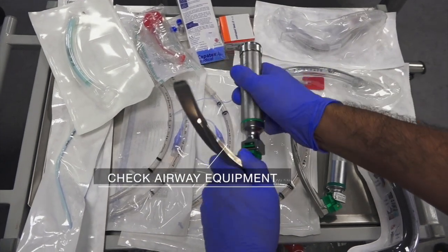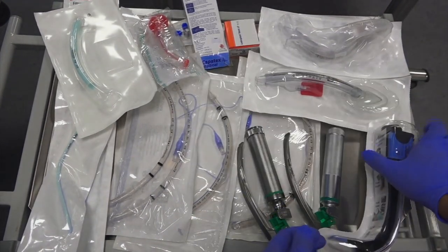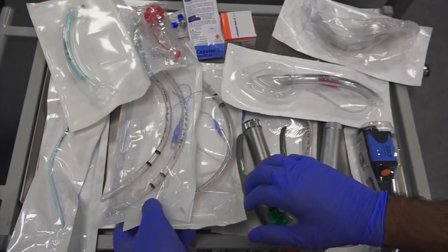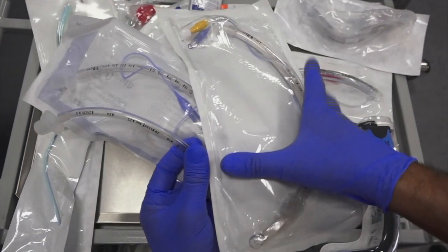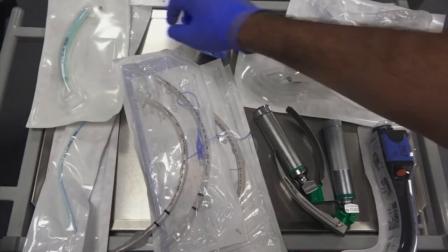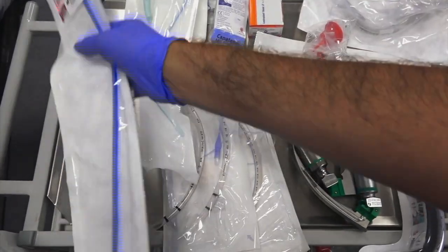Assemble and check airway equipment, including laryngoscope—ensuring the batteries are working. Check video laryngoscope. Check backup means of oxygenation such as laryngeal mask airways, making sure to have a second-generation laryngeal mask airway available. Assemble and check a variety of endotracheal tubes of varying sizes, ensuring the cuff is working on all tubes. The tube on the right allows suction above the cuff and is preferred for intensive care patients. Also check oropharyngeal airway, nasopharyngeal airway, stylette, and bougie.